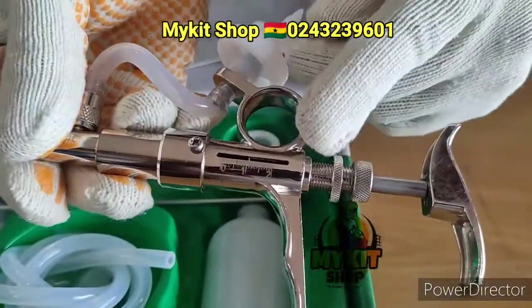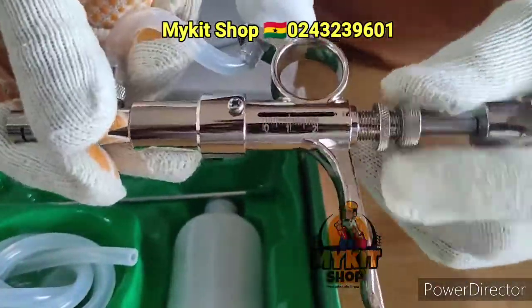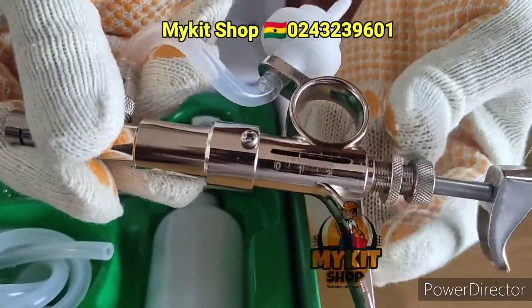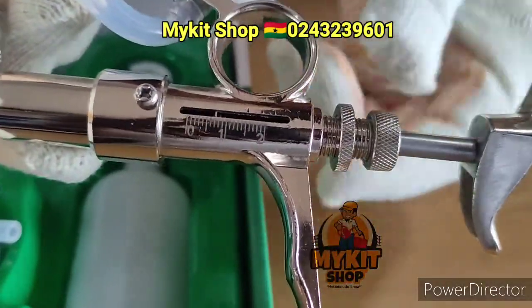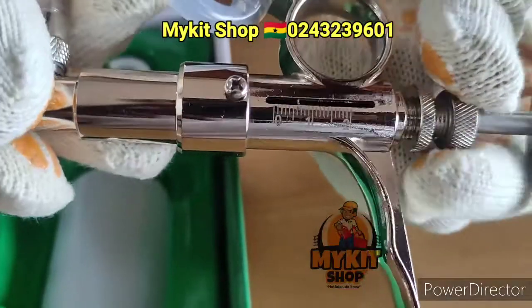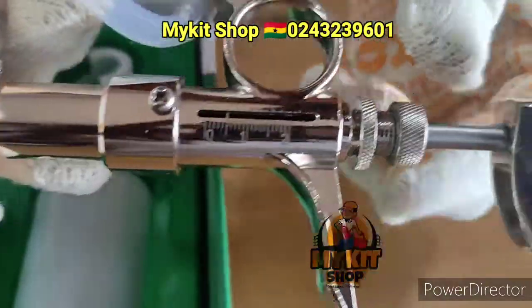I'm going to move the stopper and you'll see the pointer moving. I'm using this to move the pointer. Are we there yet? 0.5ml — yes, we are now at 0.5ml.